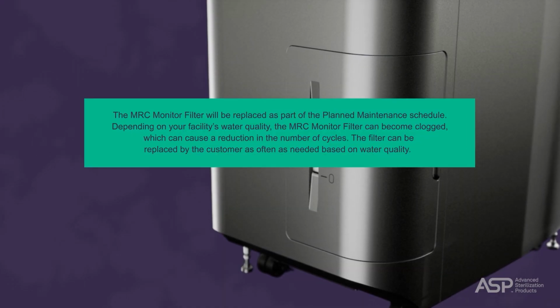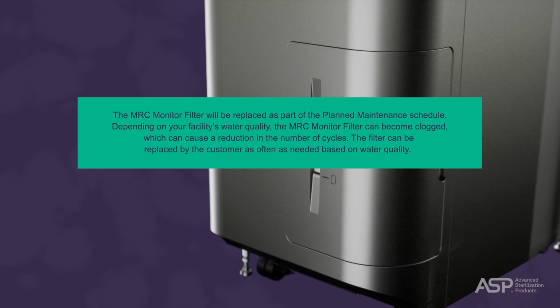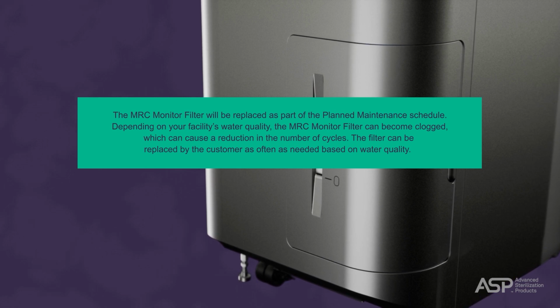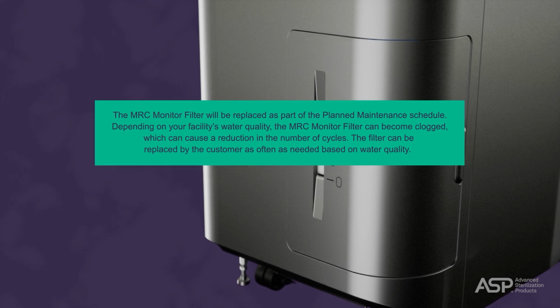The MRC monitor filter will be replaced as part of the planned maintenance schedule. Depending on your facility's water quality, the MRC monitor filter can become clogged, which can cause a reduction in the number of cycles. The filter can be replaced by the customer as often as needed based on water quality.